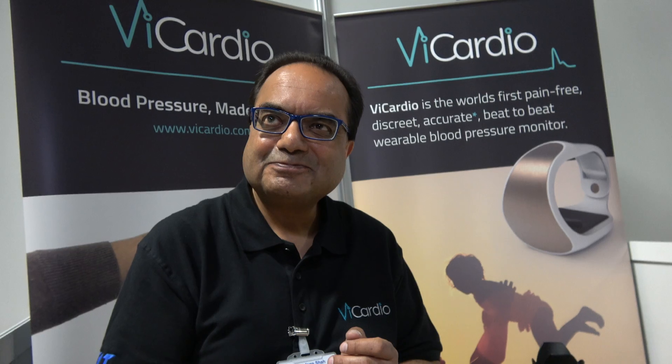Millions of people need to give this as a Christmas gift — can you be ready and approved for mass use? We're hoping to make it available and it would be a lovely Christmas present for a number of people. We're very keen that the world of blood pressure measurement benefits from this new, refreshing, unique optical technology. The price is very competitive for what systems exist to measure what we measure, and in terms of economic impact, having this system can improve your health overall and possibly reduce medication costs over time.